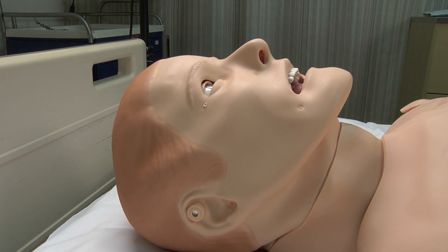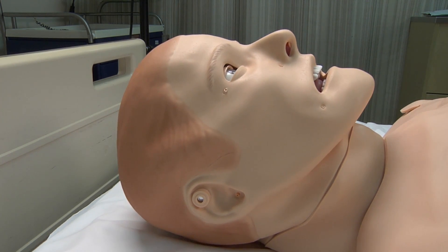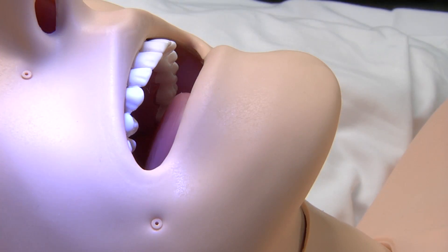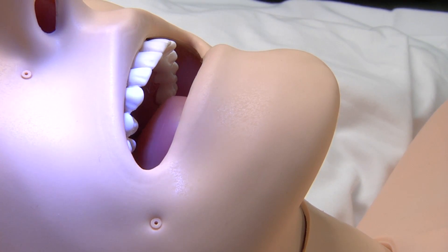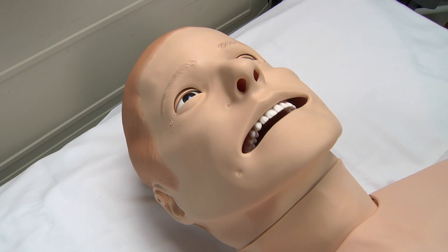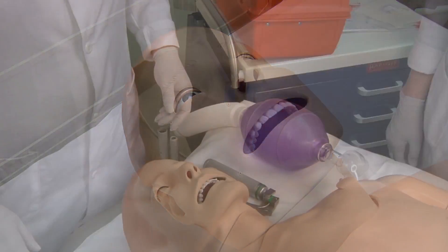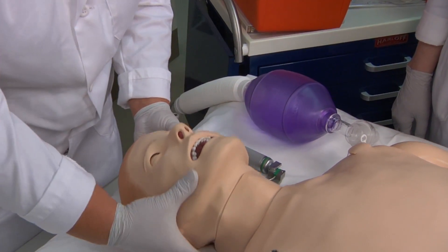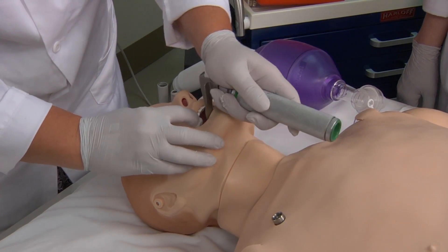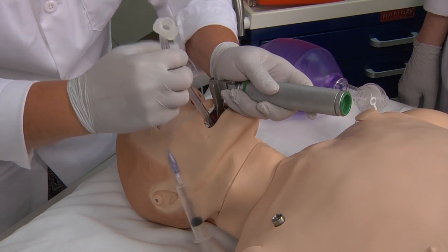His airway is quite advanced and includes the ability to emulate trismus, decreased cervical range of motion, tongue edema, pharyngeal edema, and laryngospasms. The tracheal bronchial tree in SimMan 3G is anatomically accurate to allow emergency interventions like realistic fiber optic intubation and cricothyroidotomy.